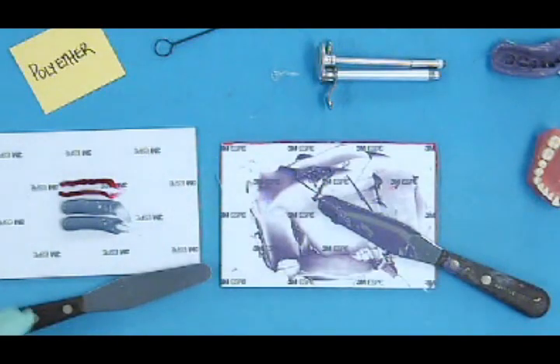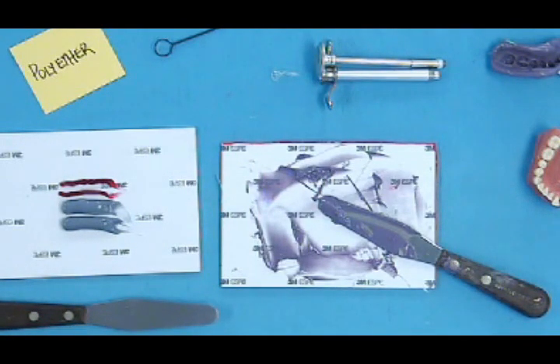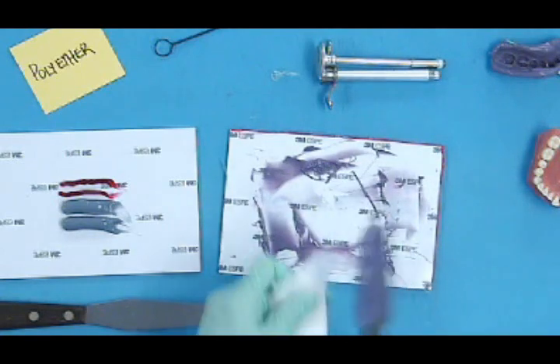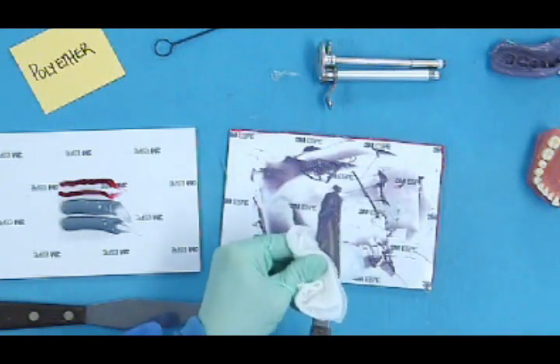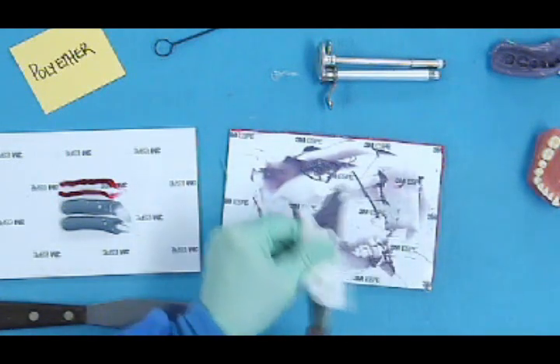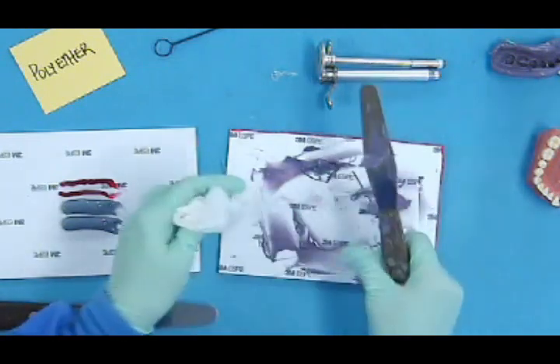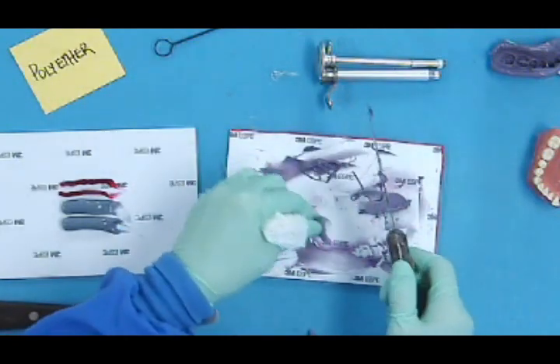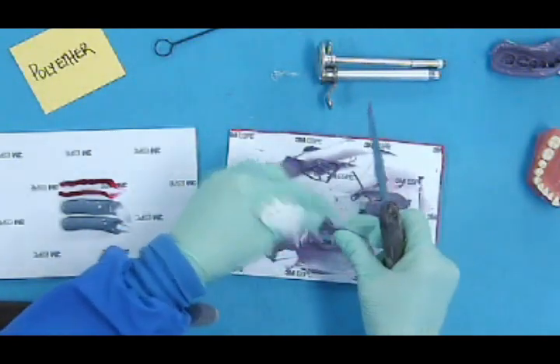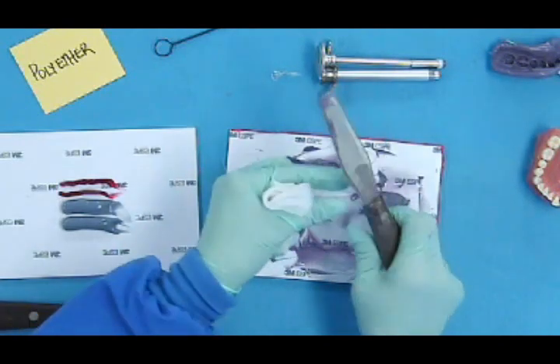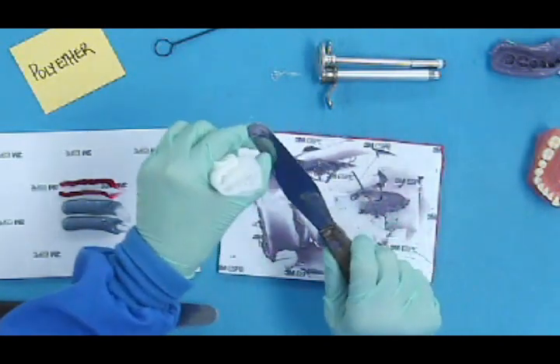Okay, so we would get that ready for the layout. I was going to show you how to clean up from that initial mix. You can get a 4x4 and the material will kind of just peel off your spatula and peel the bulk of it off.